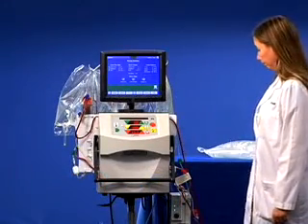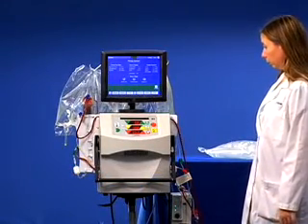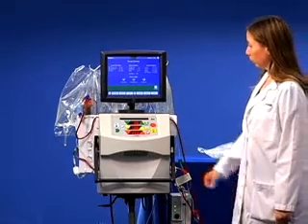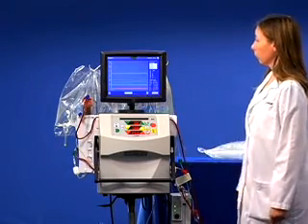First, ensure that no tubing is pinched, clamped, or leaking. From the Therapy Summary screen, click the OneView Graph button.